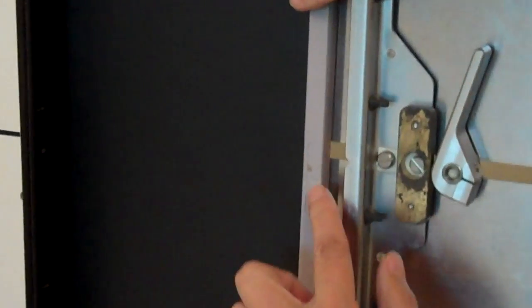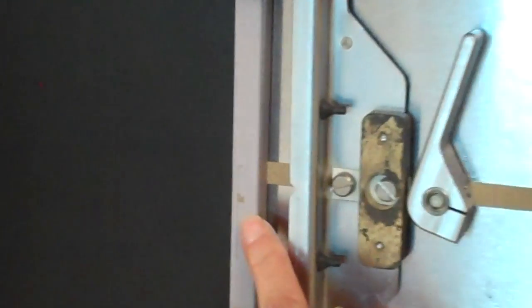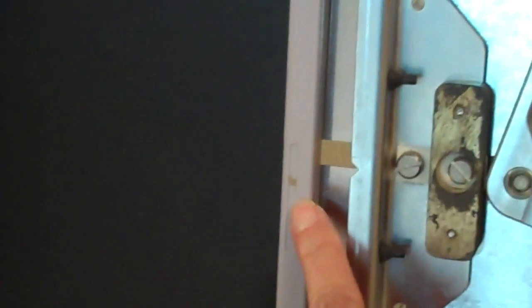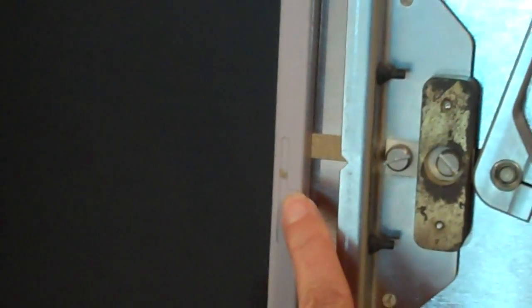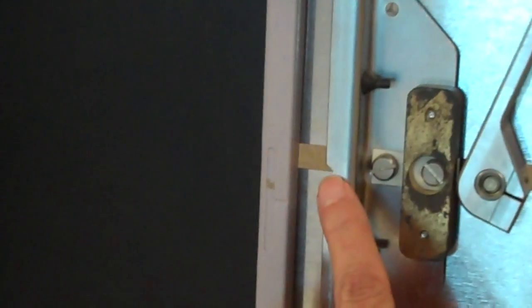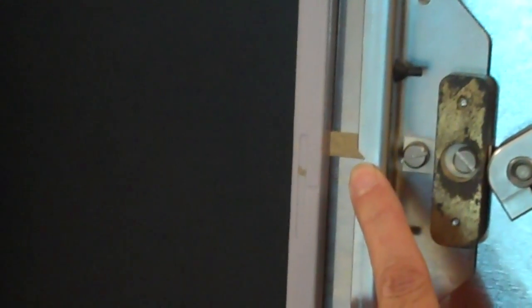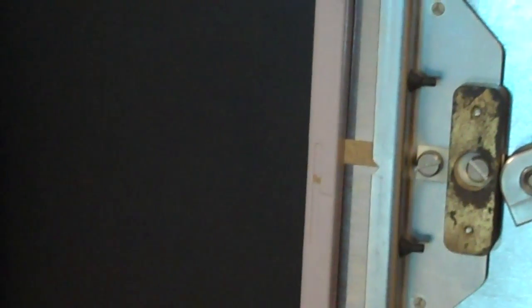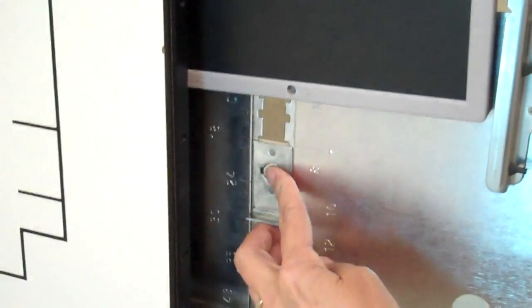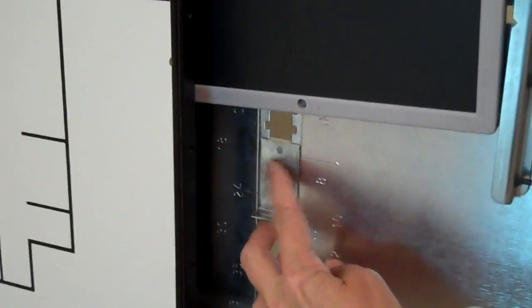And as you notice, I don't have perfect alignment. Here's the center of the image receptor. Here's the center of the bucky tray. This means you must adjust the lever.